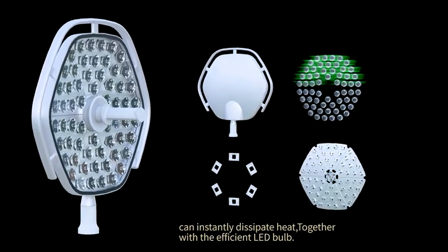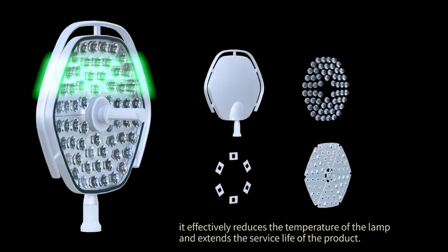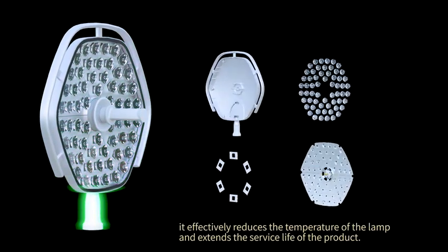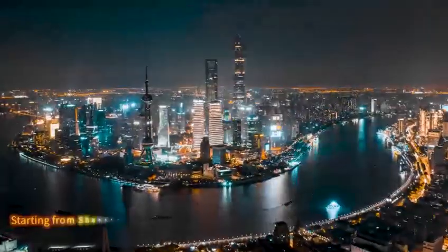Together with the efficient LED bulb, it effectively reduces the temperature of the lamp and extends the service life of the product.